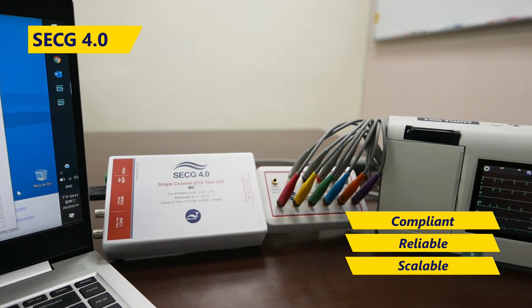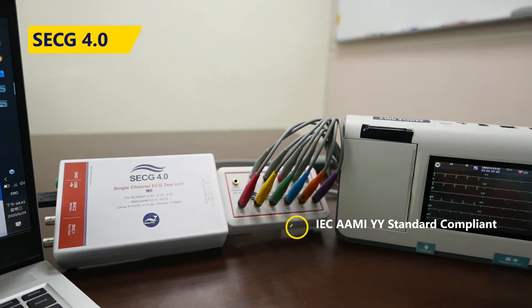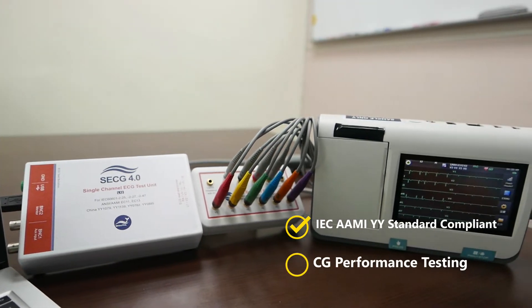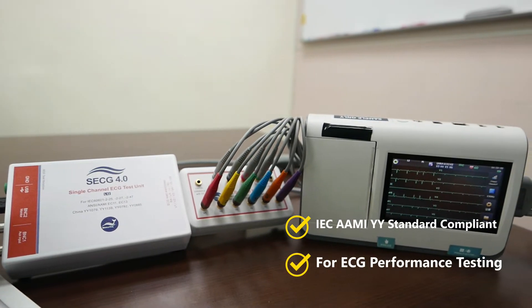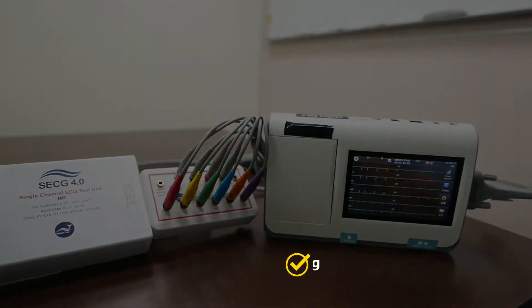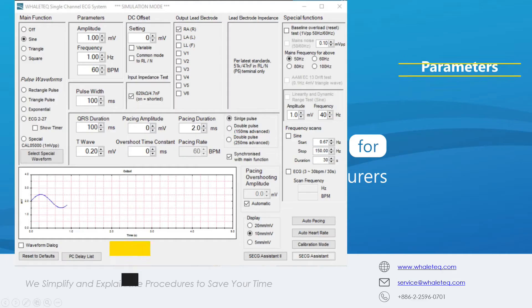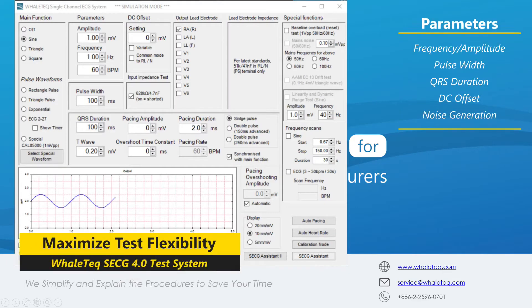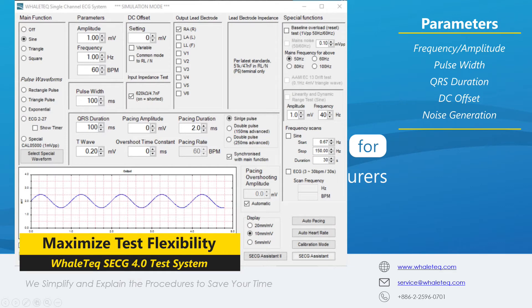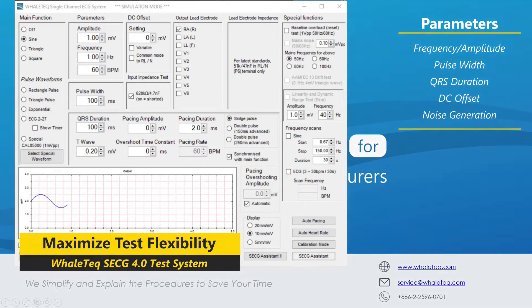SECG 4.0's circuit and specifications are medical standard compliant, allowing you to run ECG performance testing on one device. It is also low noise and high accuracy, granting you precise control over many parameters.